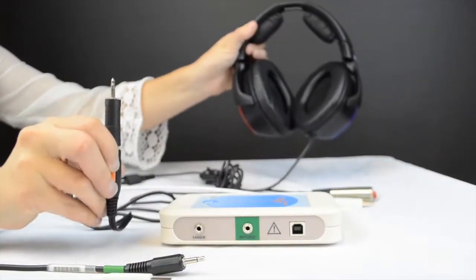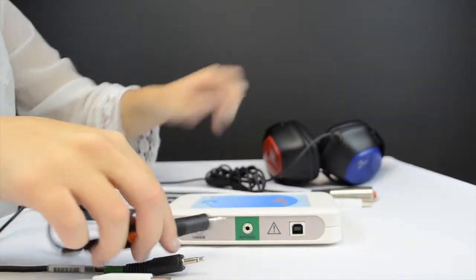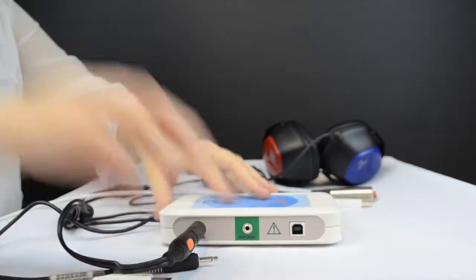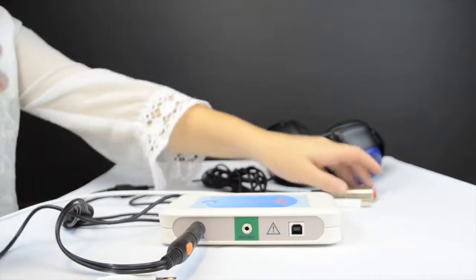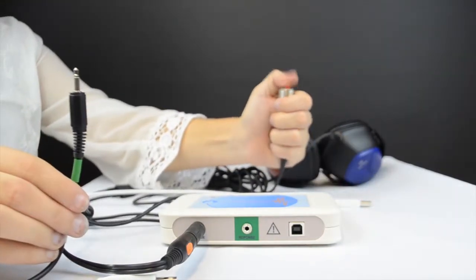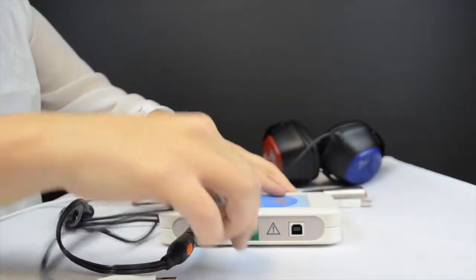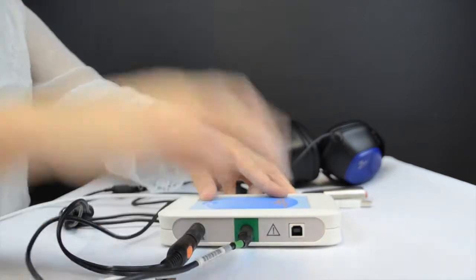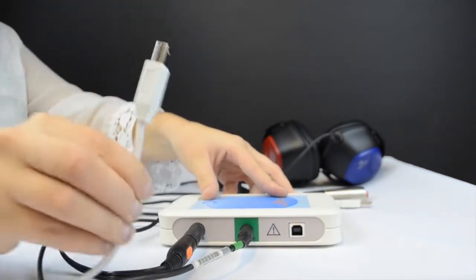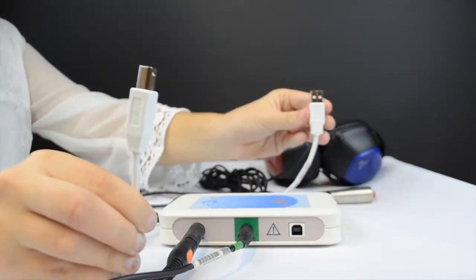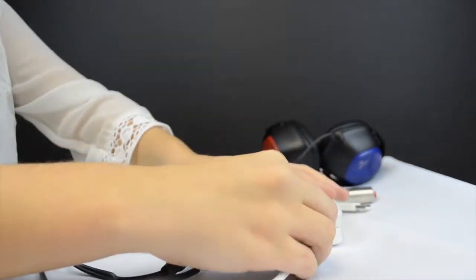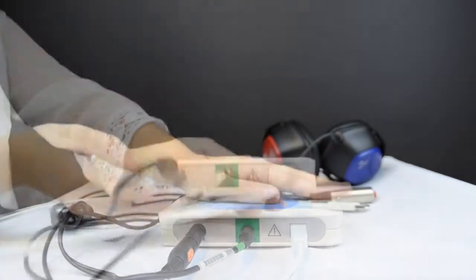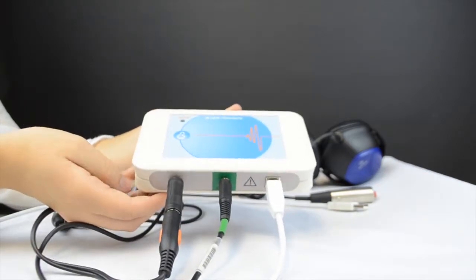Setting up this product is easy. Simply plug in your audio cord to the left-hand side, plug in your patient response switch to the middle, and finally connect your USB cable to your USB sampling box. Then you're ready to proceed.